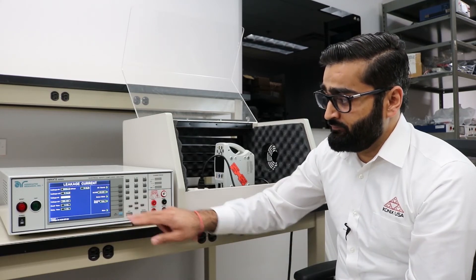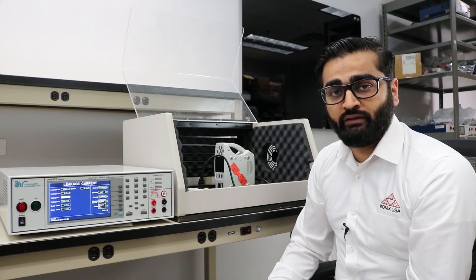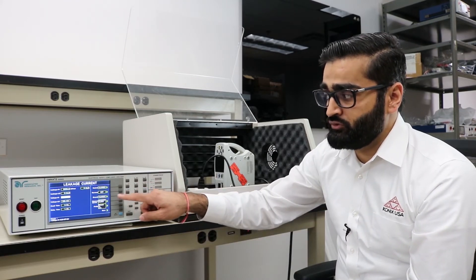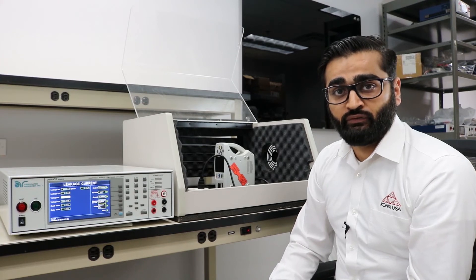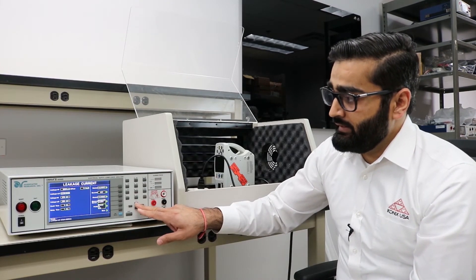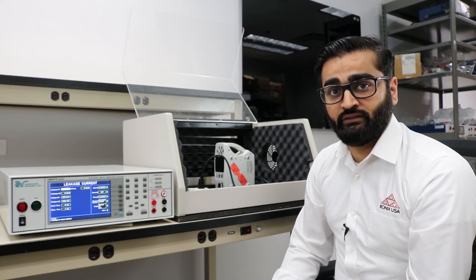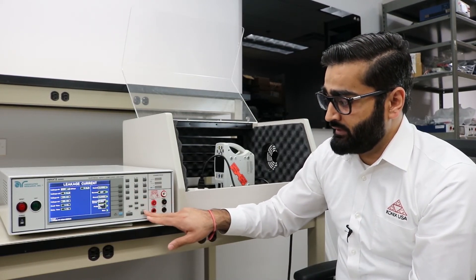Next, we're going to take a look at the fault condition. For step one, this is a normal operating condition and does not have any faults — we have a normal condition with neutral closed, reverse off, and ground closed. For step two, we're going to include ground as open, which creates a single fault condition. And last, we're going to be taking a look at leakage current. We want to enter the high limit, which the instrument will fail out if the leakage current exceeds this amount. In this case, we're going to enter 5000 microamps as the high limit.